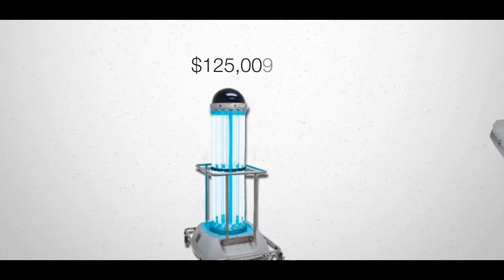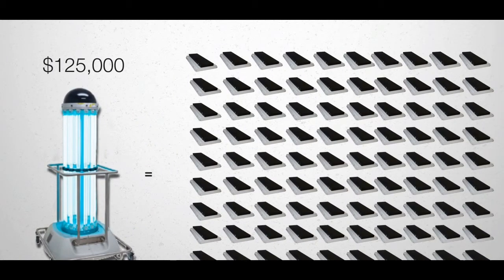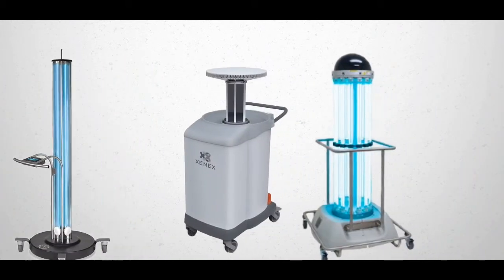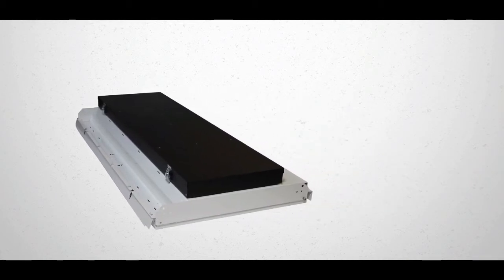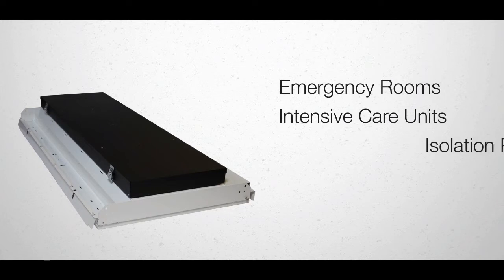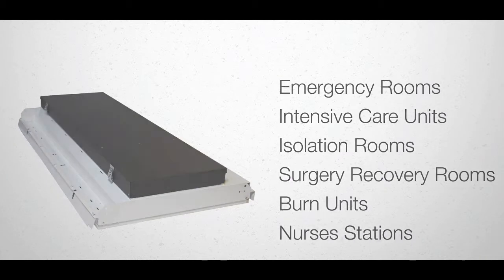The ArkeLux system is the most cost-effective system on the market. We're a fraction of the cost of the portable surface disinfection systems we have previously mentioned. You now have the opportunity to install this defense system in emergency rooms, intensive care units, isolation rooms, surgery recovery rooms, burn units, and nurses stations, just to name a few.